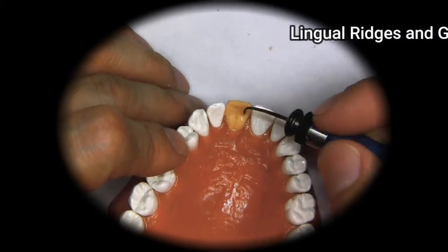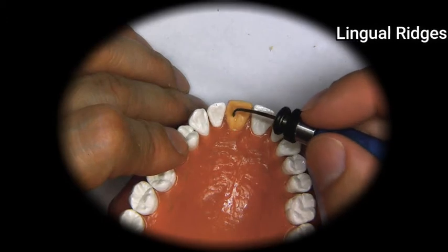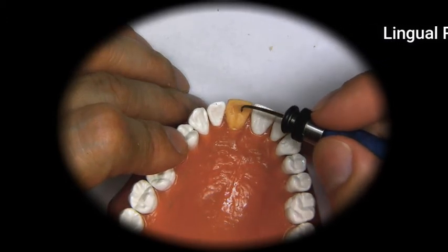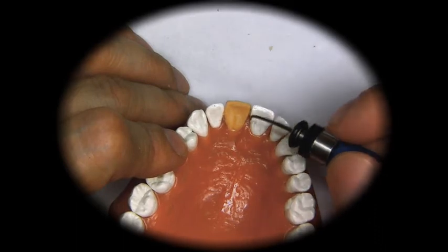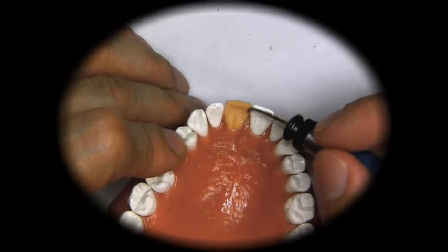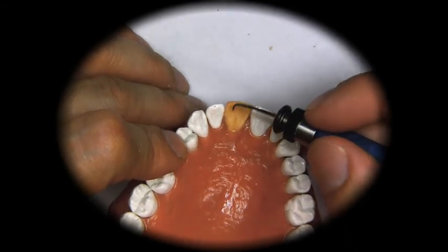But you don't want to put a smooth surface next to a surface that is not smooth, because the patient will pick up on the difference and thus they will feel some discomfort. They can get used to it, but may request some kind of adjustment.